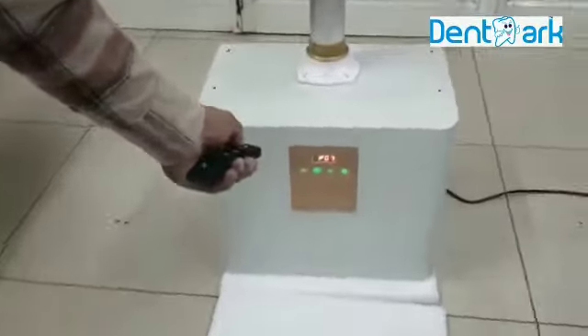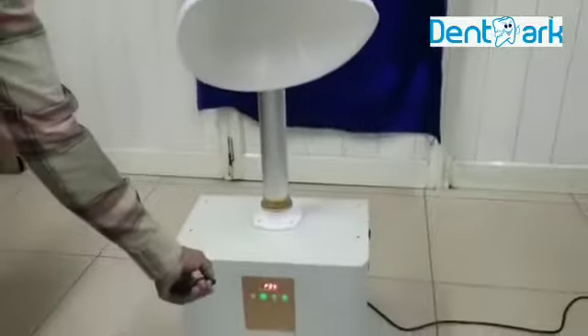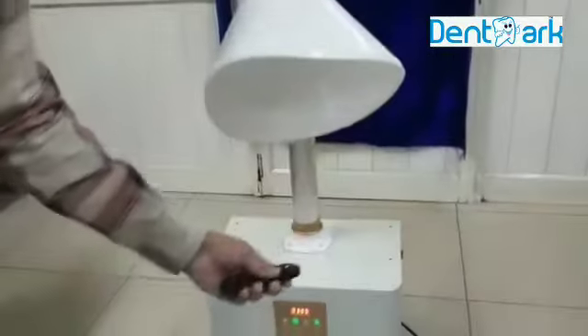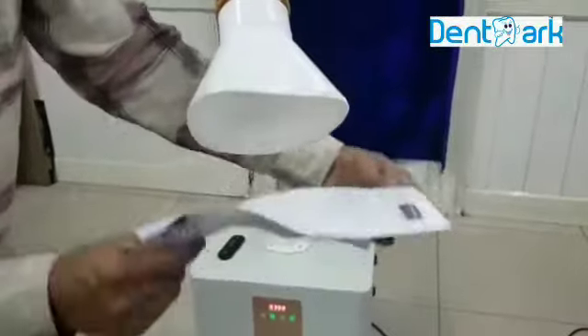The speed level at level three. Now it increases in power. Now I will put the power to full — you can see more power at full.